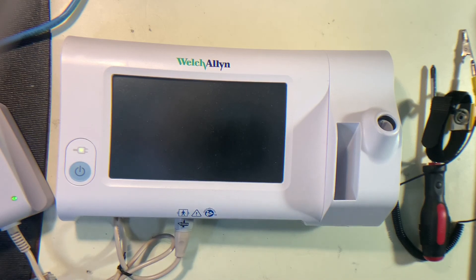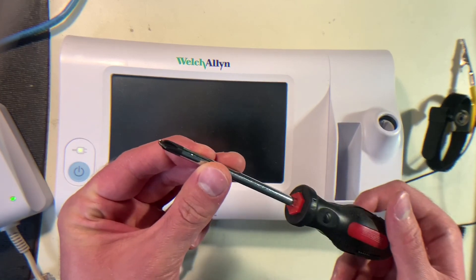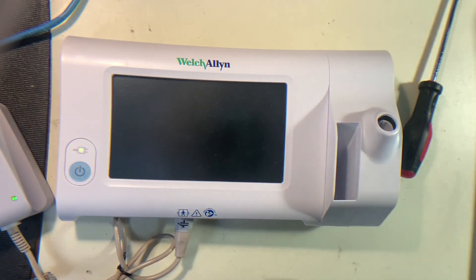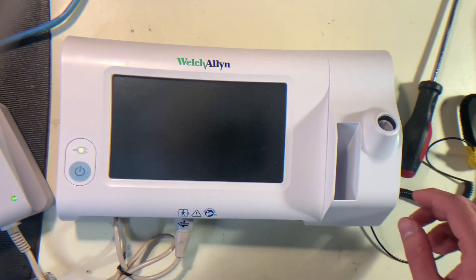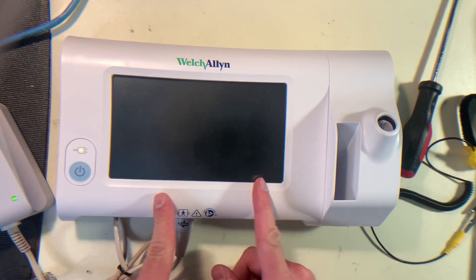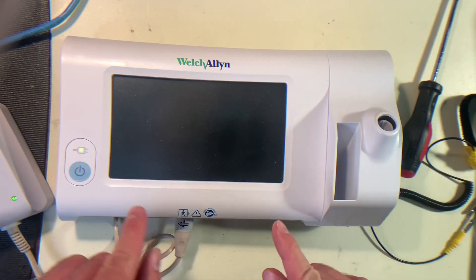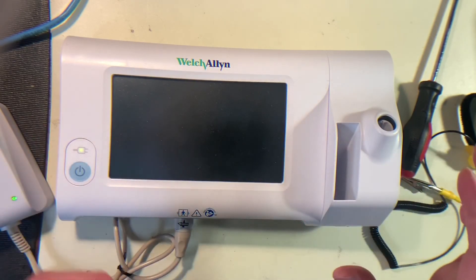So now let's take it apart. To take it apart you will need two different tools: a number two Phillips head screwdriver and an anti-static wrist strap, which is going to be a little bit tricky to use because this is an entirely plastic case. We won't be able to actually attach the strap to anything until we've taken the main cover off.